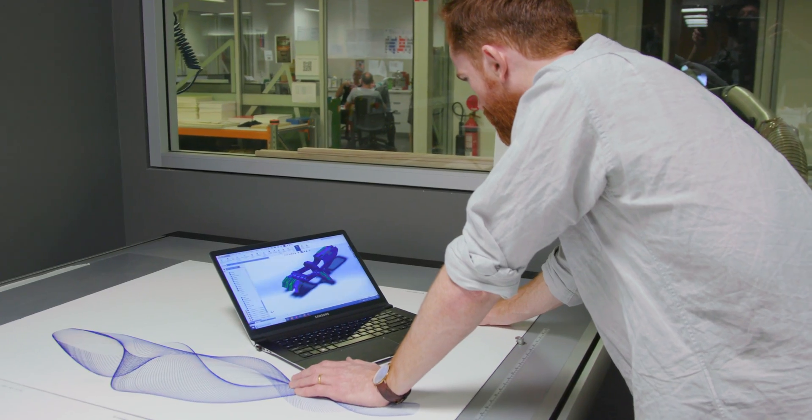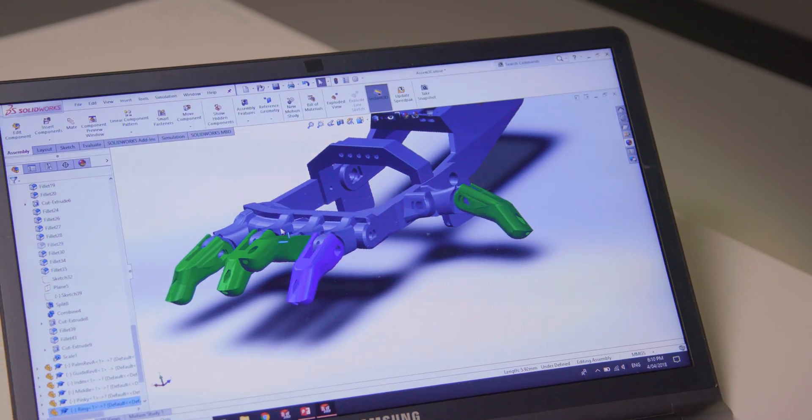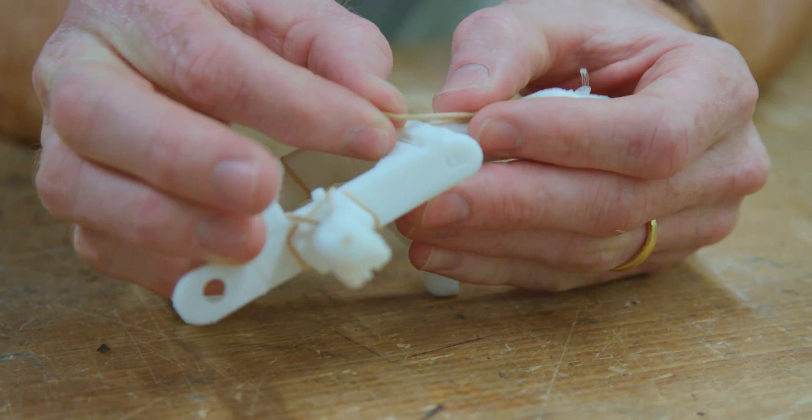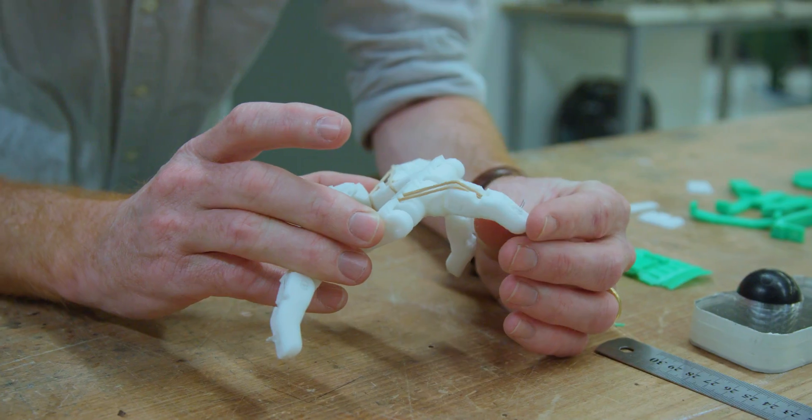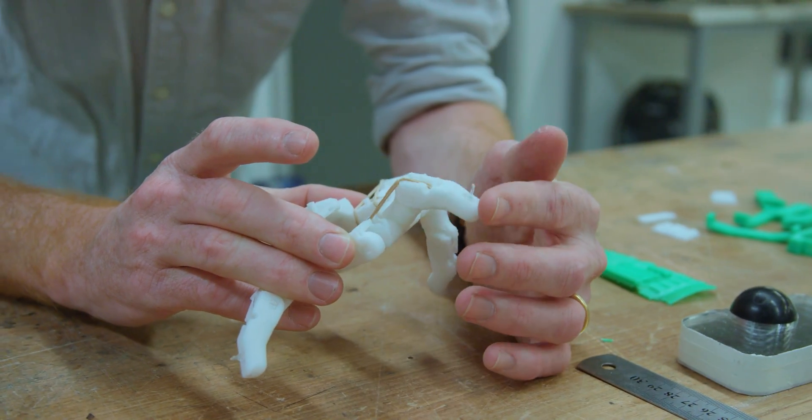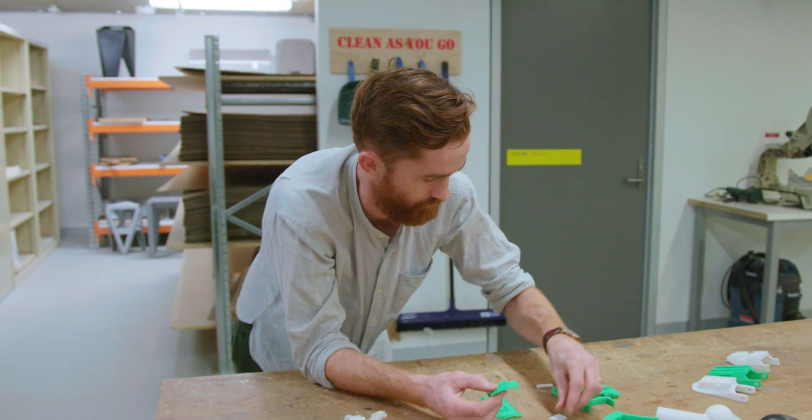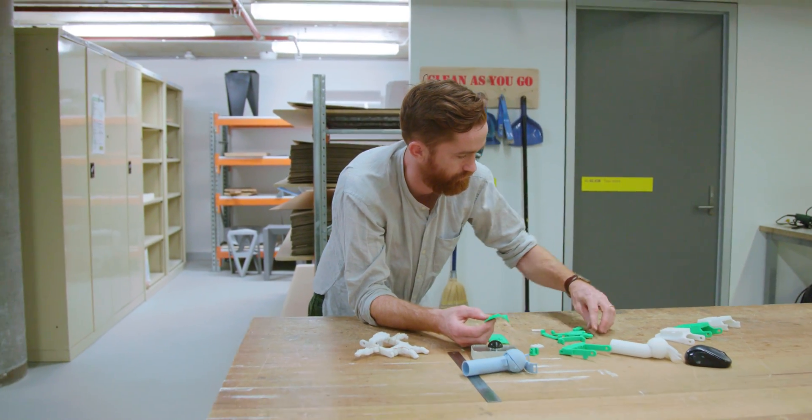The ability to go from the design you see on screen very quickly to a physical object that you can test, and then you can go back and forth and keep changing that design so quickly—for industry, that's a real game changer. Normally you'd have to wait months for tooling to be made to see the physical outcome of your design, and that cost a lot of money.